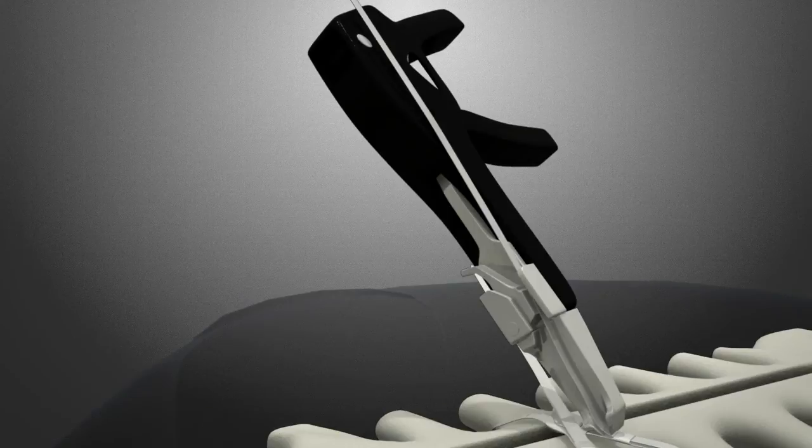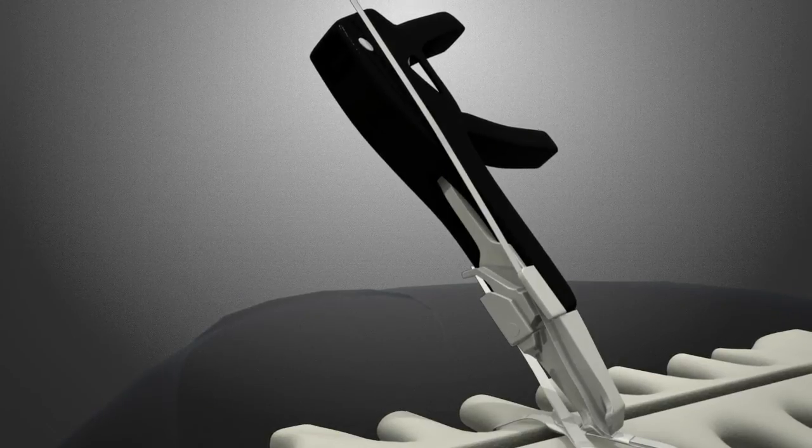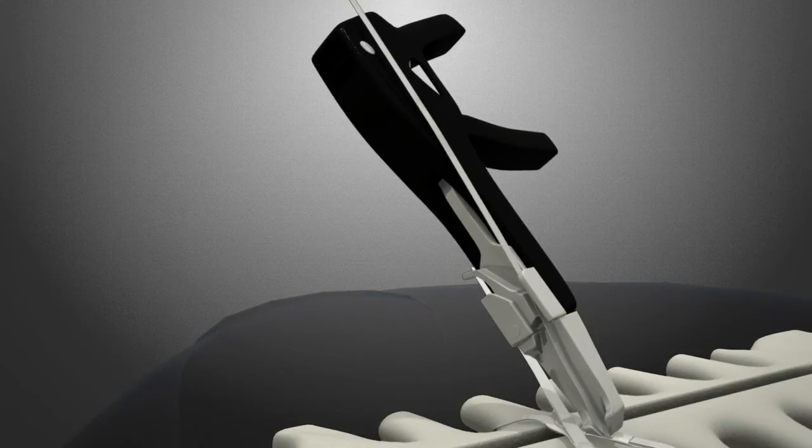It is important to keep the tool at a low angle of operation while tightening the strap. This will allow the strap to come out of the box smoothly.